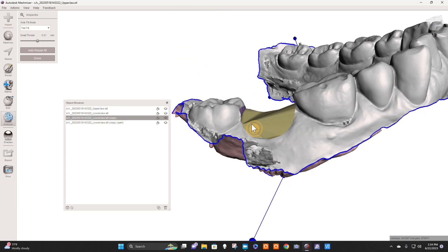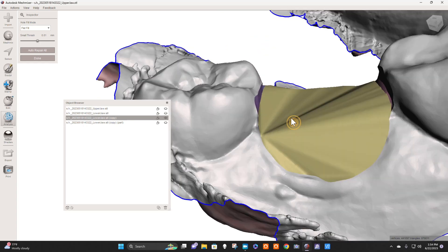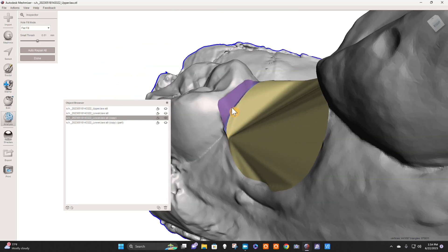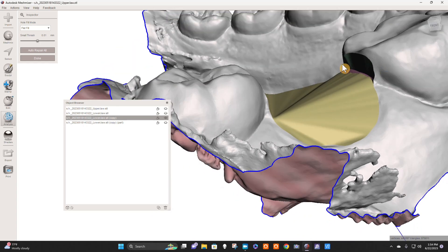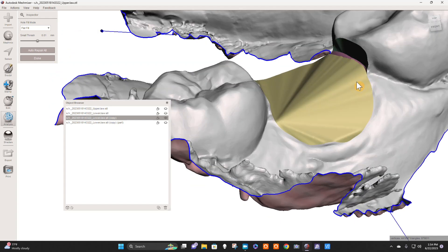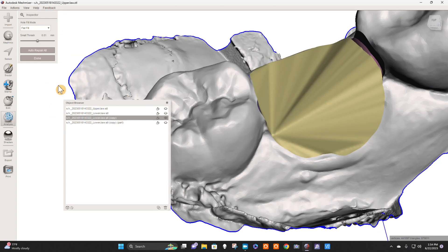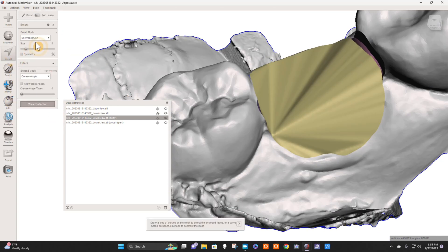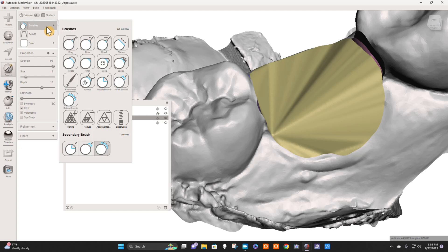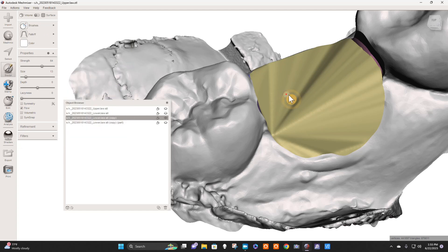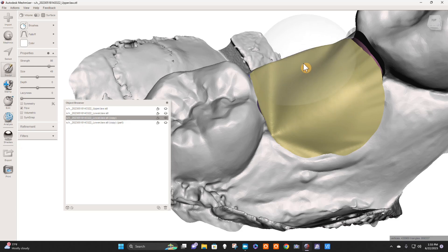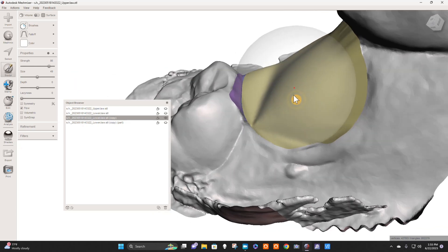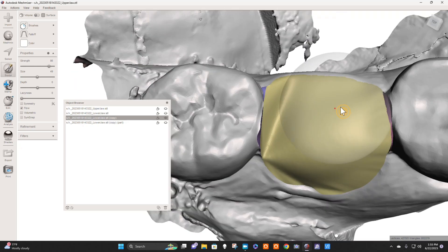Okay, we did good. So what you were looking for by bridging here is getting these surfaces to be flat like that. So now we're going to go to our Sculpt Brushes, Bubble Smooth here.